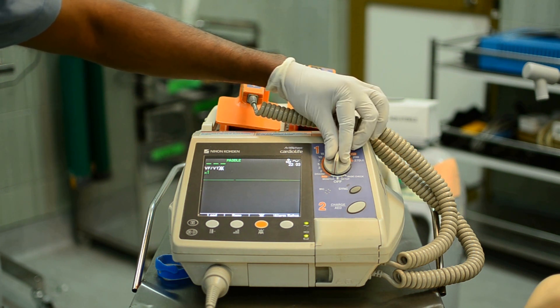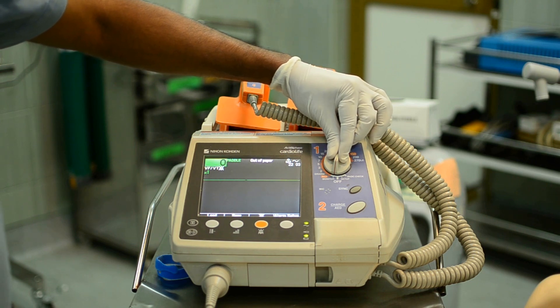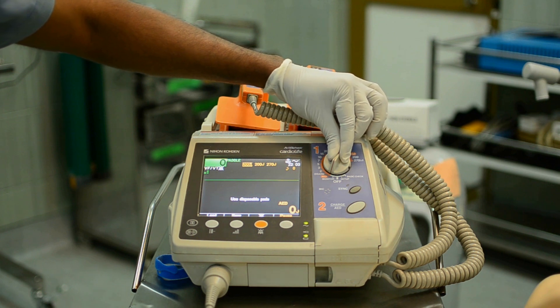If you turn it to AED, it will start prompting you assuming the availability of adhesive pads, prompting you to use disposable pads. But this demonstration is without pads.